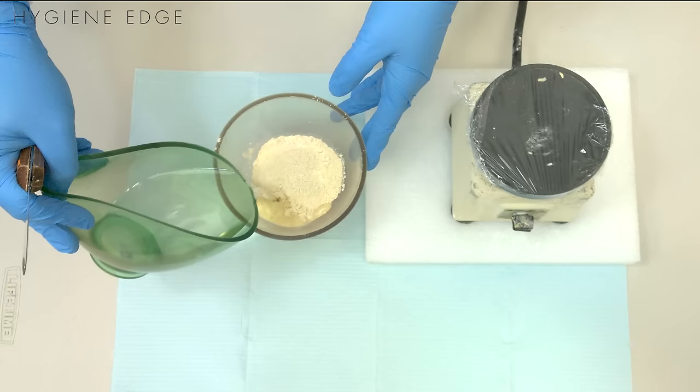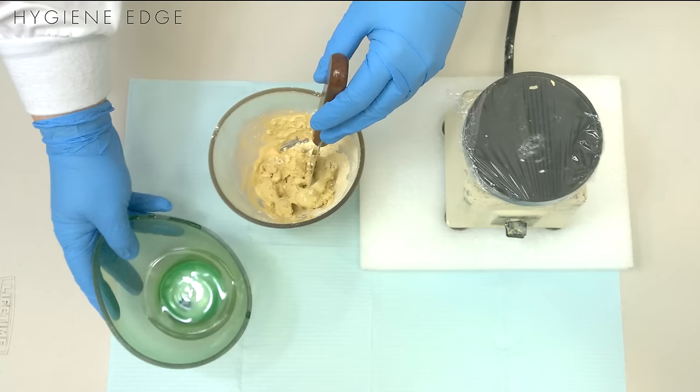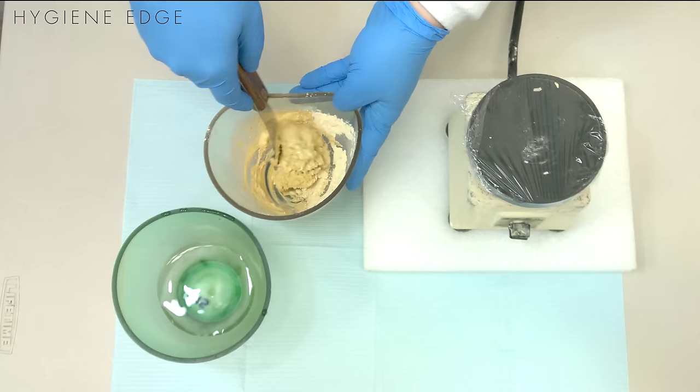To mix the stone, you're going to add the water to the powder and you'll realize a little bit of water goes a long way. If you feel like your mix is a little bit dry, add a little bit of water at a time.